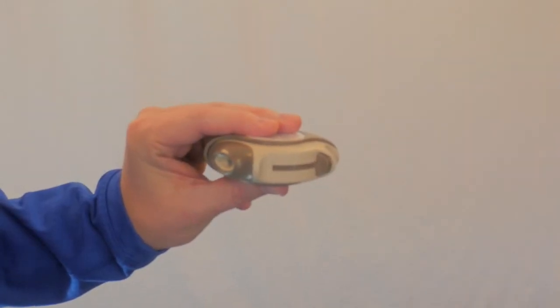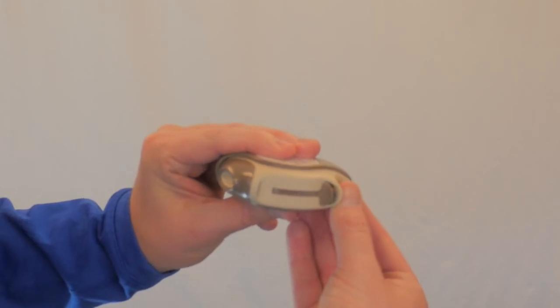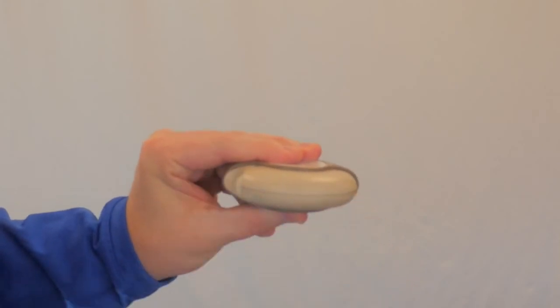Close your discus by placing the thumb on the thumb grip and sliding it back towards you as far as it will go. Once you close your inhaler, go rinse your mouth with water and make sure that you spit it out and don't swallow it.